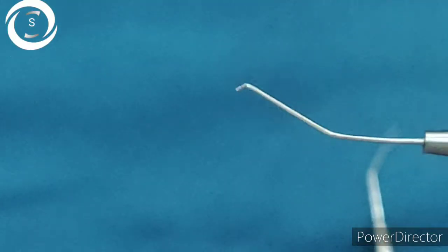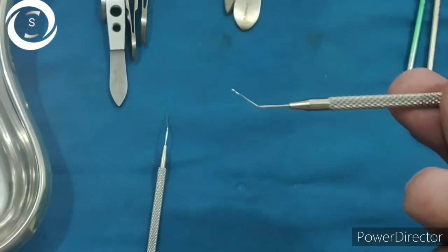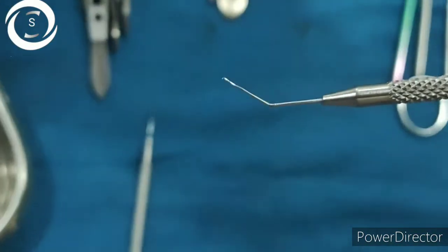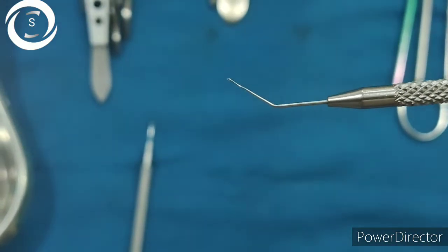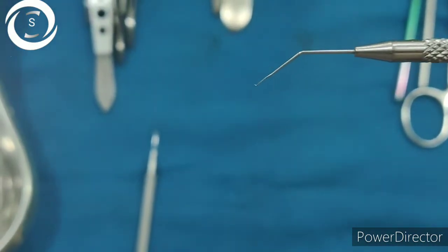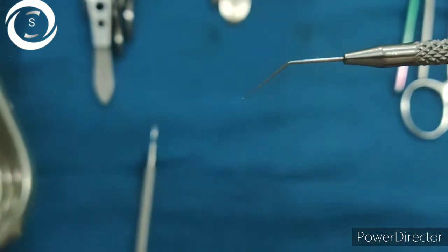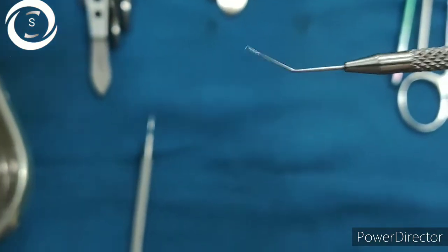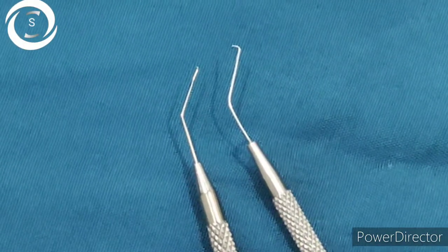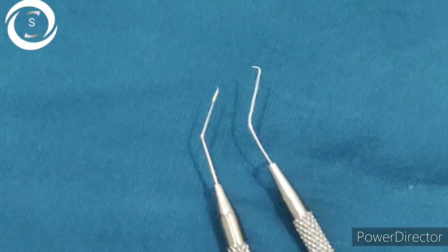Make sure if this instrument is given to you in exams, you should be able to identify it as a chopper. The other one with a shorter pointed tip is called the dialer. It is used for dialing and inserting the intraocular lens into the bag, and some surgeons also use it for chopping with phaco as a second instrument.